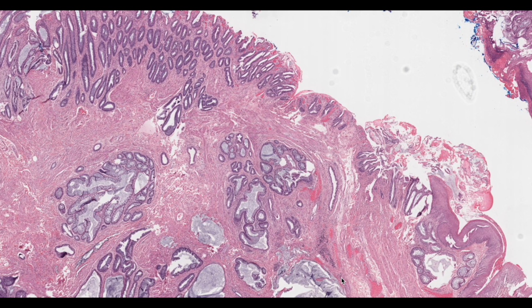So let's go and discuss one more case, an approach to an intestinal biopsy. This is a lesion from the rectum. I'll be giving you a brief description about it, and let's go one by one. For ease of comparison, I'll be noting down a few points here. I'll use my cursor to look at it, and also compare it to one more lesion so that we can actually differentiate what exactly happens here, right?